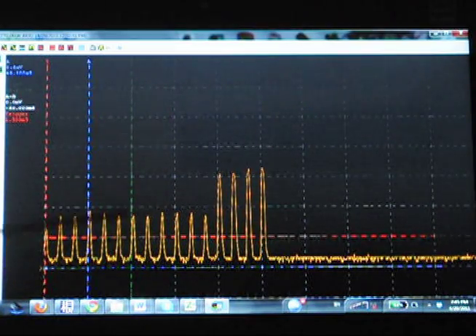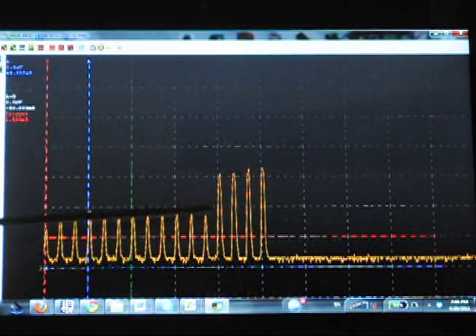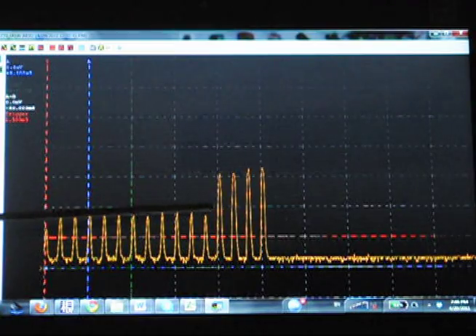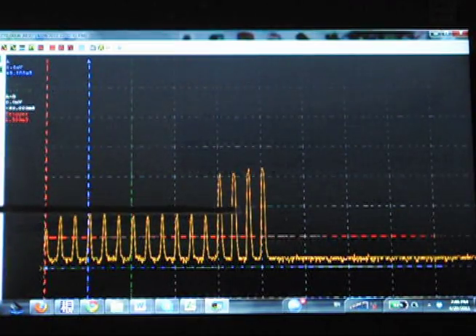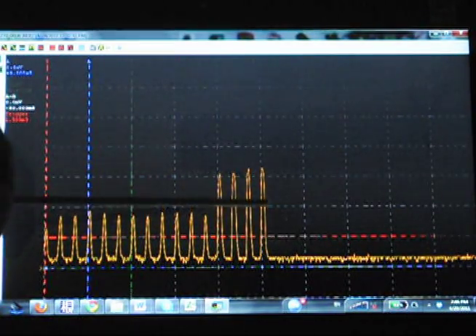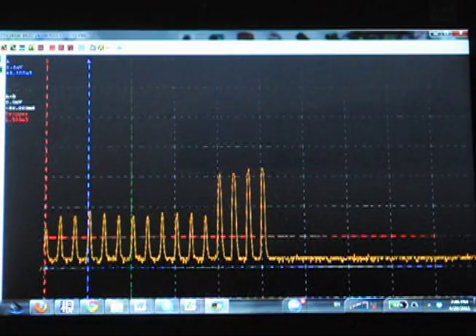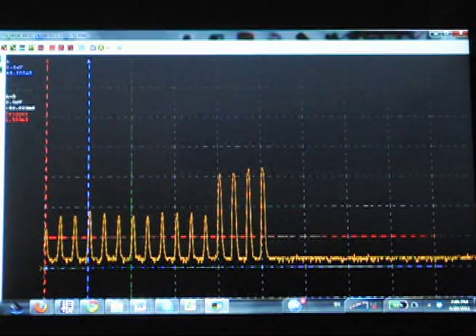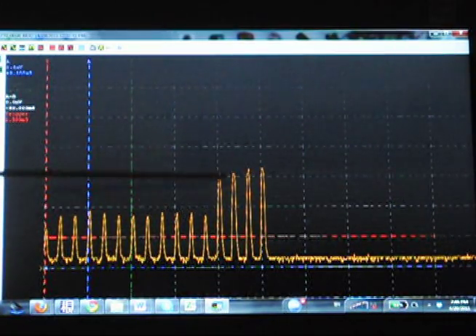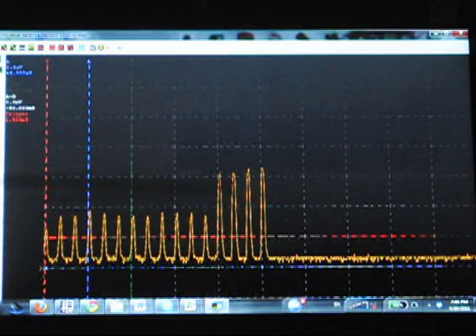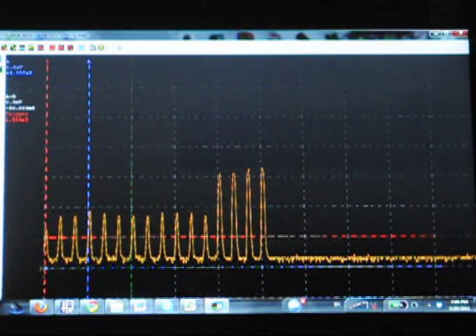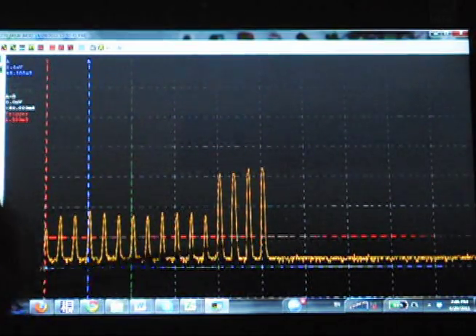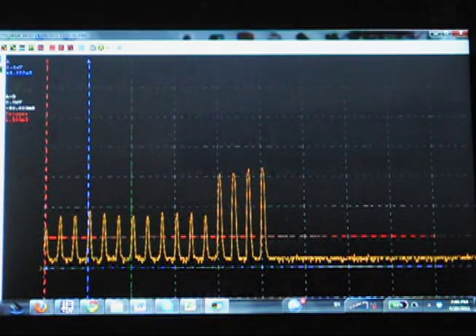And if you look at the time, this is 50 milliseconds per division, so that's just a little longer than 50 milliseconds. That is your 0.06 seconds, or 60 milliseconds. And the height of this is proportional to the x-ray intensity, and of course this is time, again, 50 milliseconds per division.